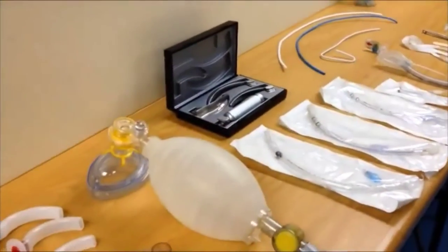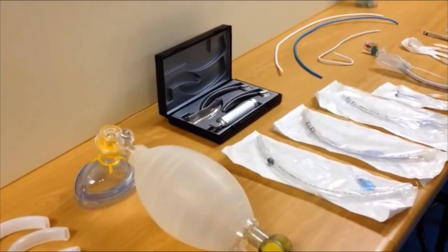In order to check our equipment we will talk about checking the laryngoscope and checking the endotracheal tubes.